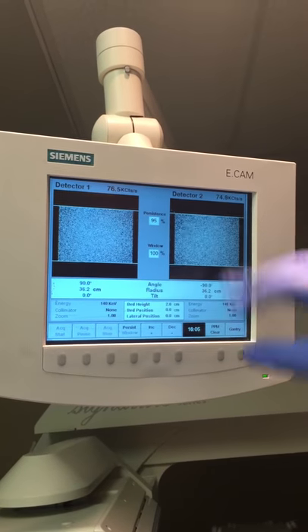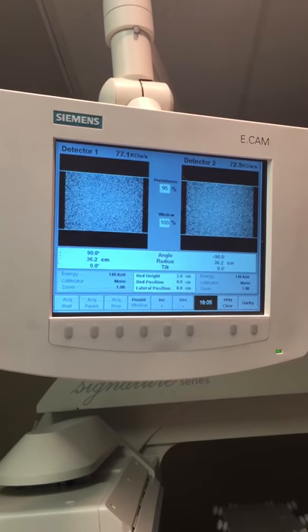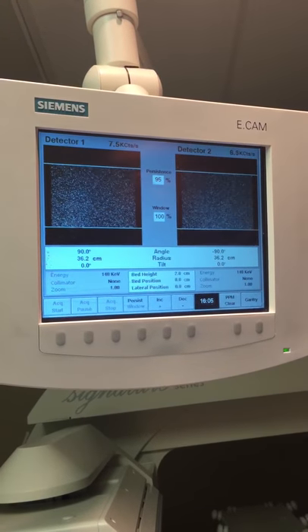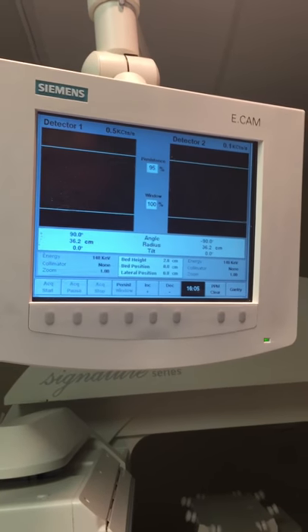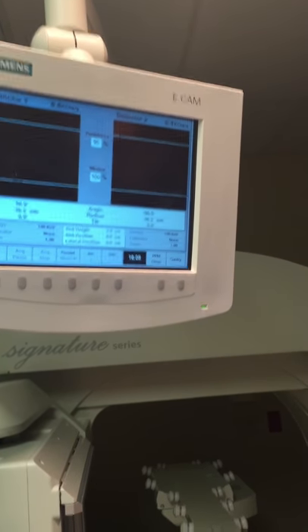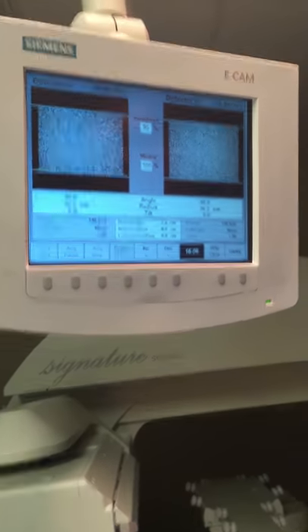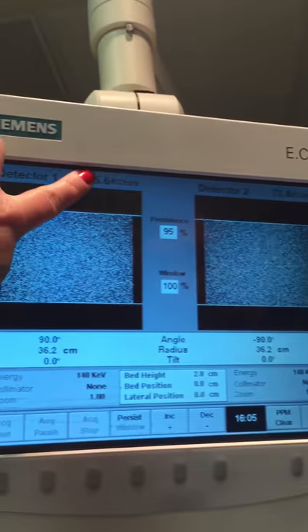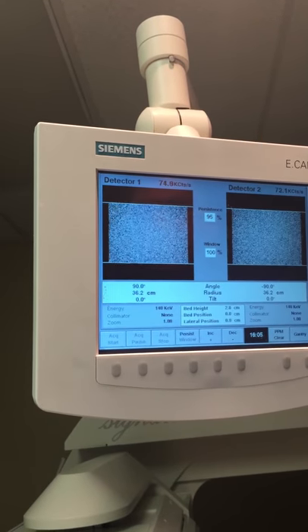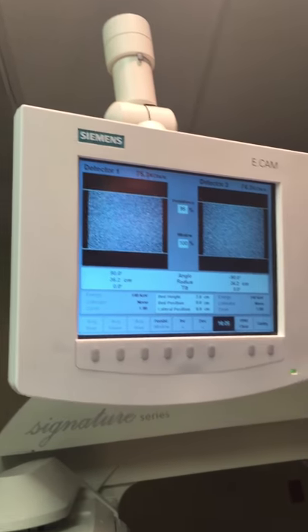You can see it's persisting from the activity of the source. If you take it out for a moment, those crystals aren't detecting much radiation because it's in the tackle box. But if you put the source back in, you can see the activity. What we're looking at up here is K counts per second — so it's the number of photons being detected per second.